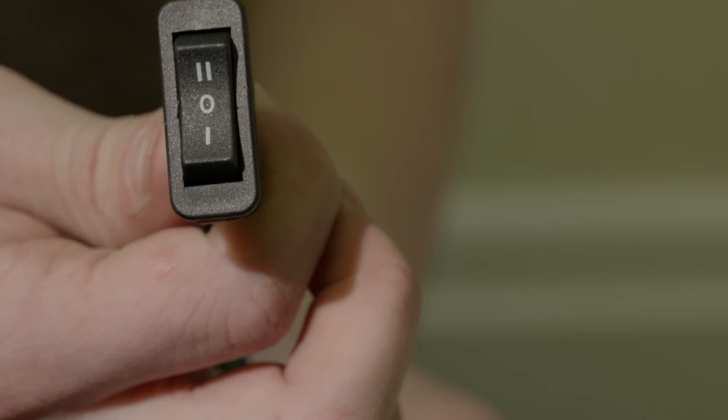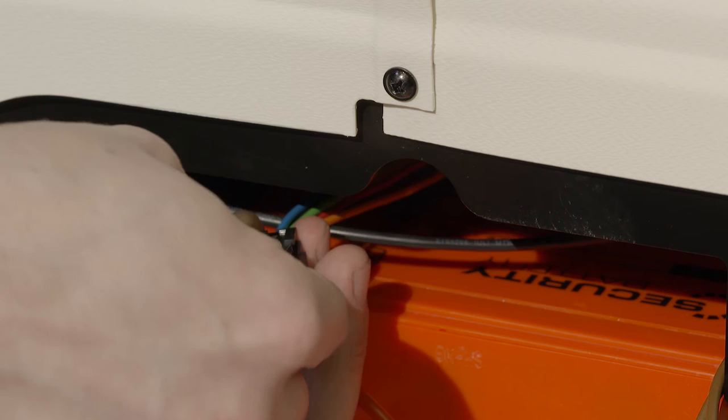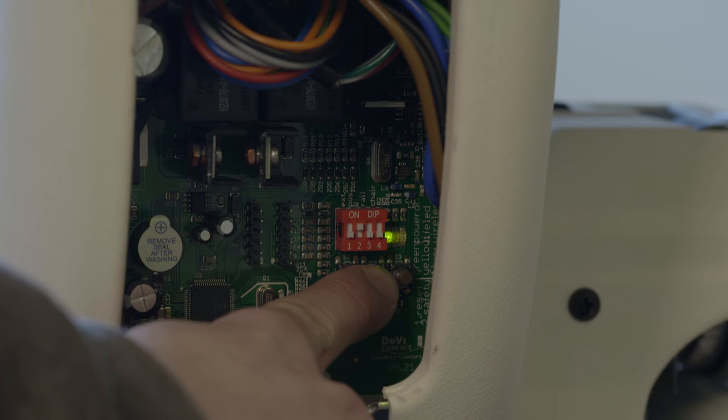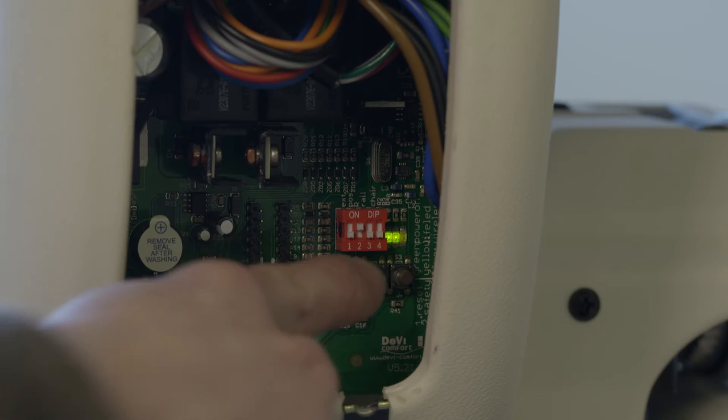If you have chosen the extra of a temporary remote, locate the PCB cable on the rear of the carriage, feed through to the front and carefully connect the temporary remote. Once this is connected, hold down buttons one and two on the main board and switch on the main switch. Keep these buttons pressed on for five seconds. Then the temporary remote is ready to use.